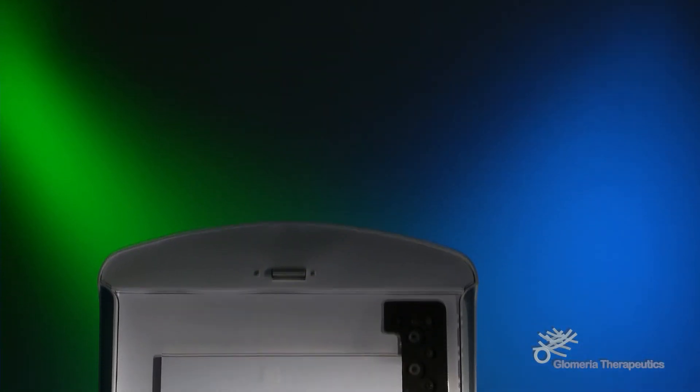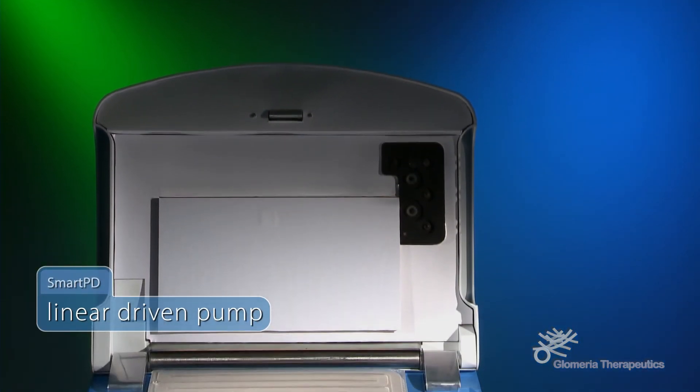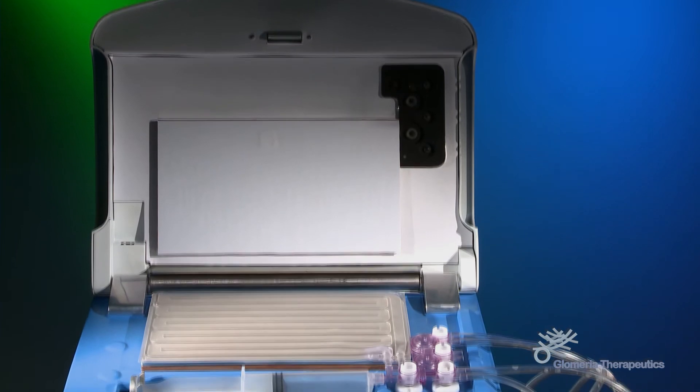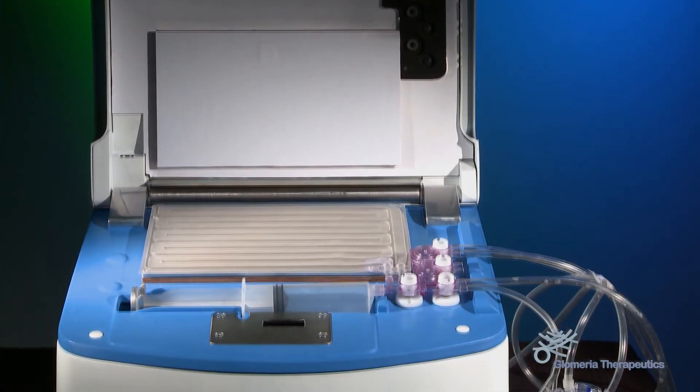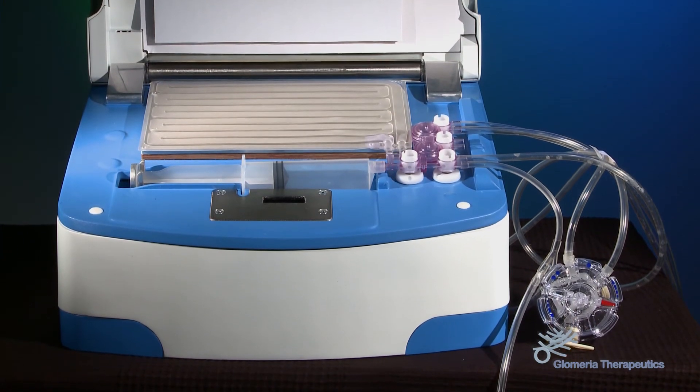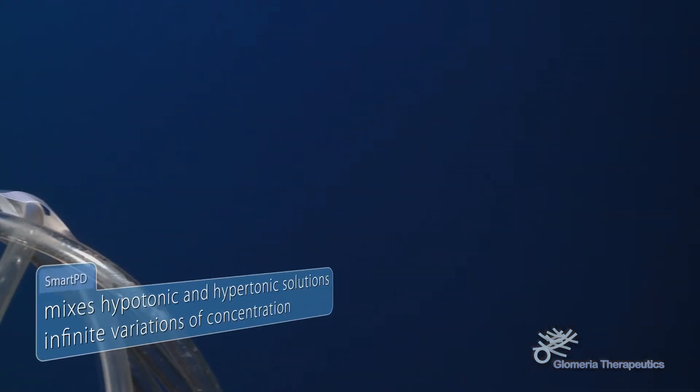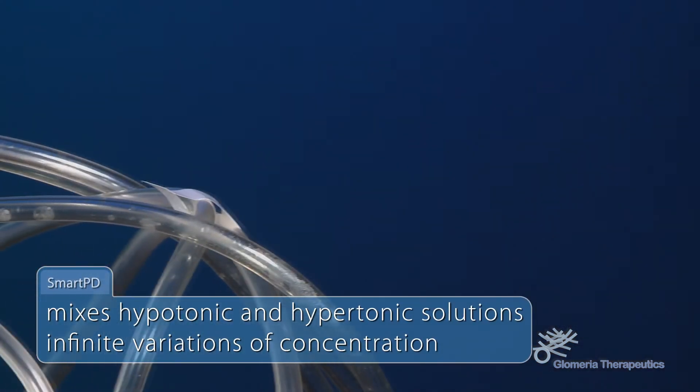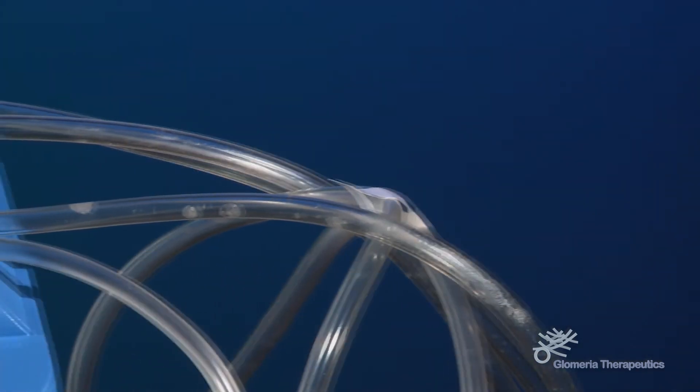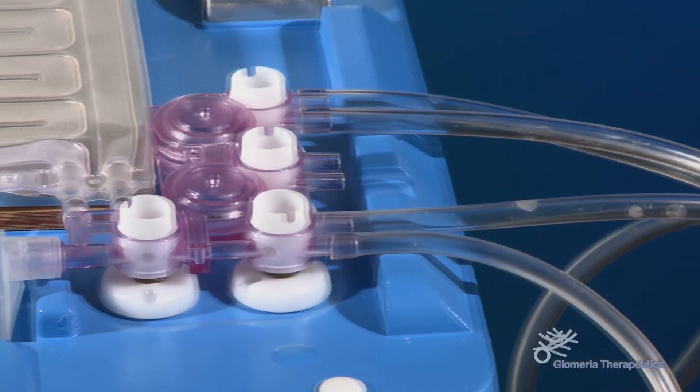SmartPD technology utilizes an encoded engine linear driven pump and control safety software for total reliability. It automatically modifies the concentration of the dialysis fluid entering the peritoneum adjusted for each patient. The Glomeria cycler also mixes hypotonic and hypertonic solutions with infinite variations of concentration, adapting the solution to the patient, not vice versa.